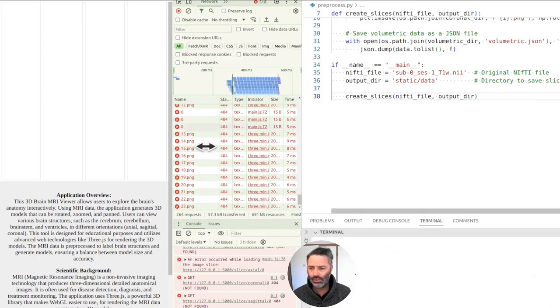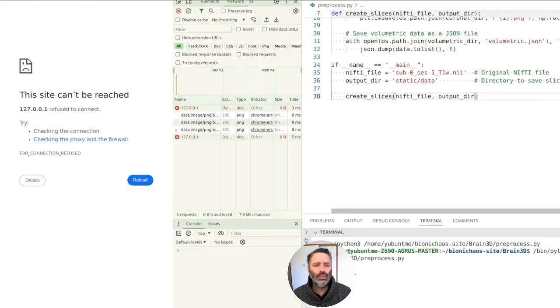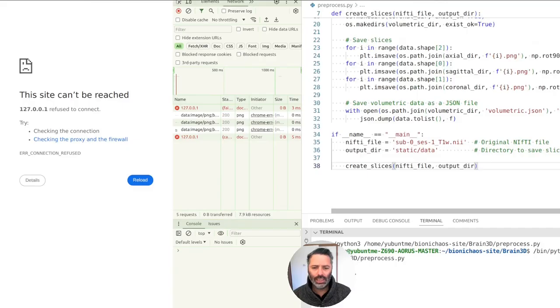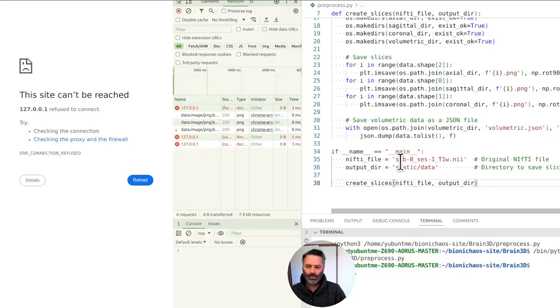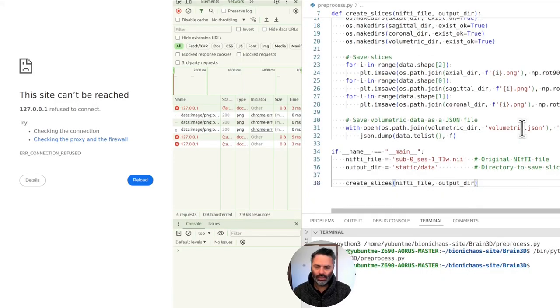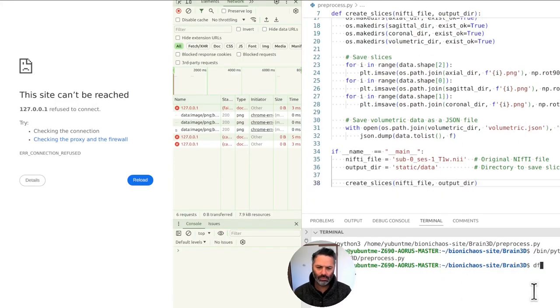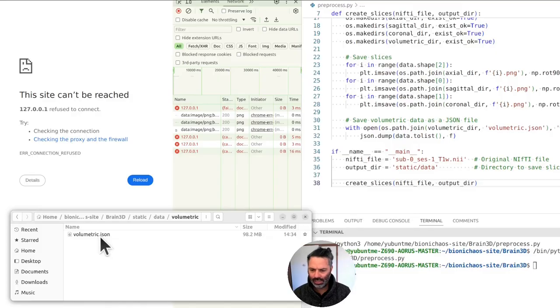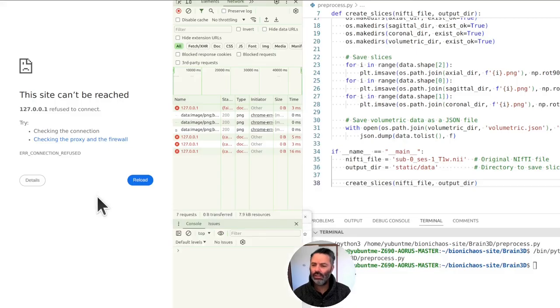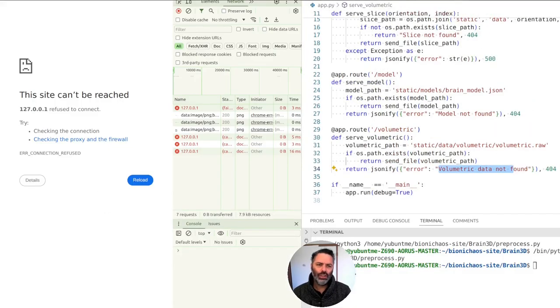We're saving it as JSON and we'll have to run it again because we just deleted the data files. We have to regenerate them. For that we need to kill the terminal to stop the Flask application and run the preprocessing code. As a reminder, we're taking data from OpenNeuro — as opposed to OpenAI, OpenNeuro is actually open with a Creative Commons license. The data has four items; volumetric has the JSON file which is 98 megabytes.